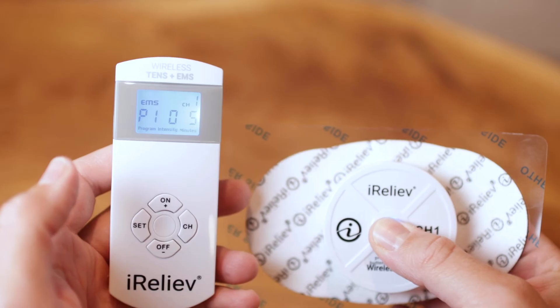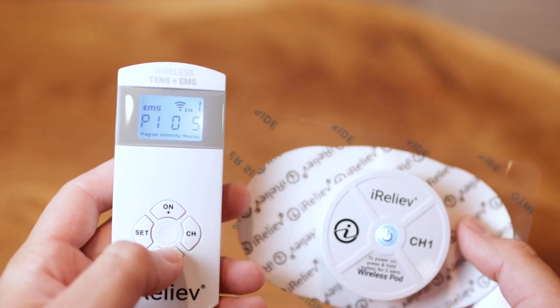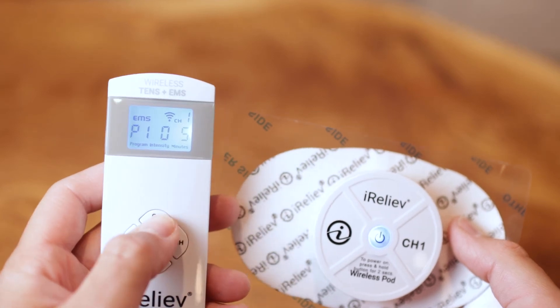You can wear a TENS unit while working or being active throughout the day. Of course, you want to make sure that your wires don't get snagged on things if you're moving around. The wireless version solves this issue. And while it's a bit more expensive than the wired option, you'll find that it's nice to be able to move around without wires and with less pain.